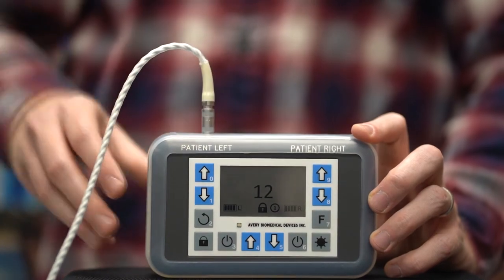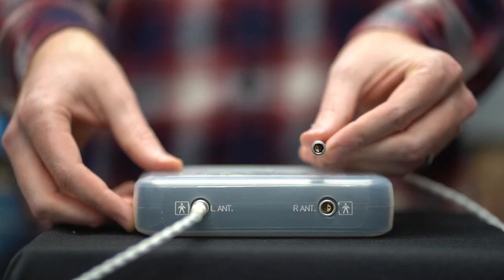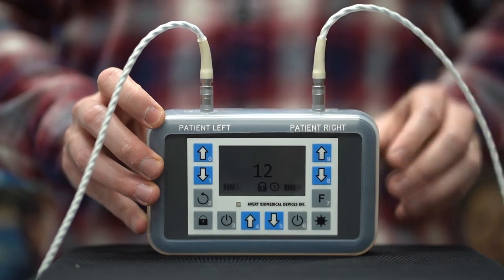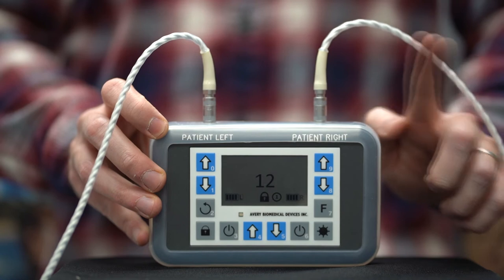Do not turn to lock the antenna into place. Repeat for the other side. Do not rotate the metal plug when it is in the spirit socket.